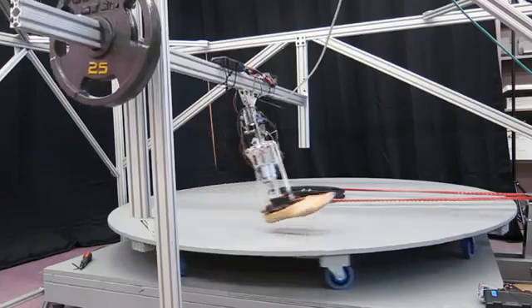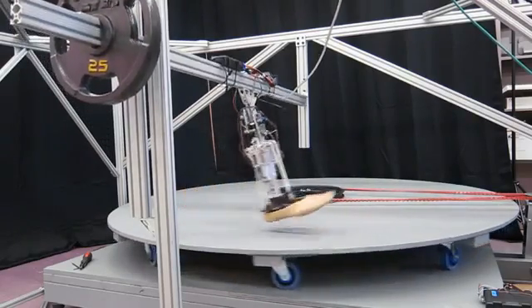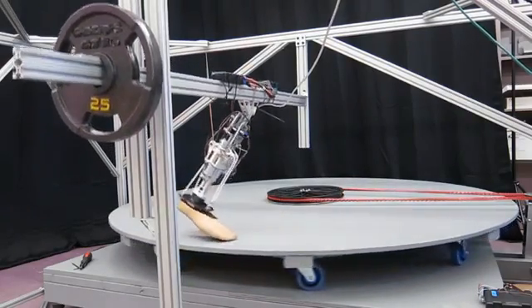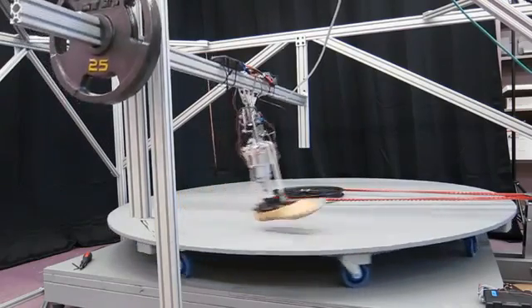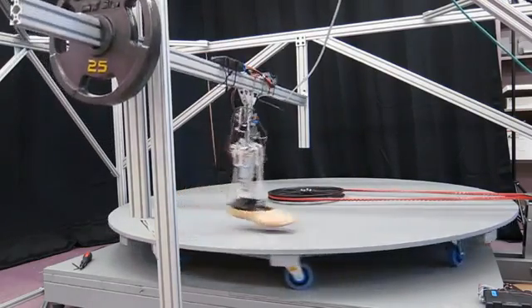This feature makes the artificial legs perform more similar to human biomechanics. It will increase mobility in amputees that result in improved emotional and physical well-being.